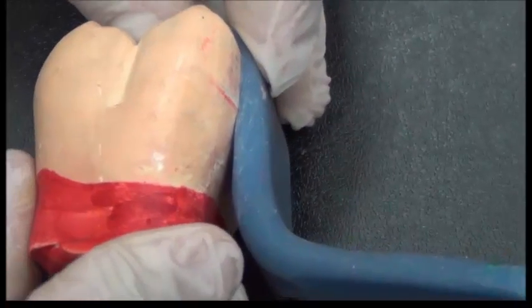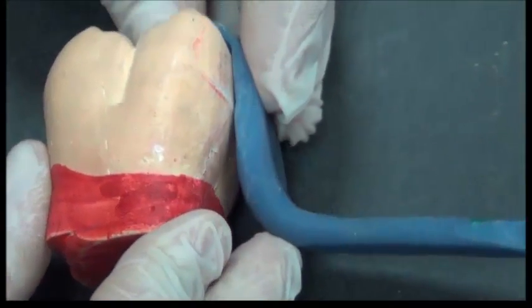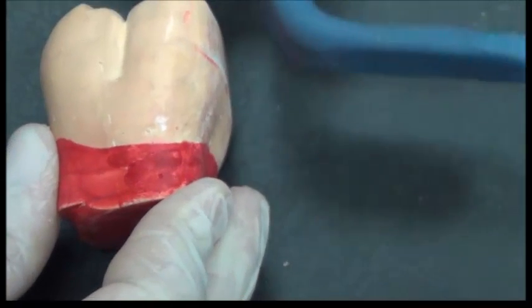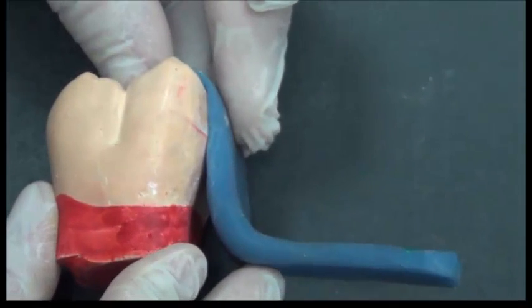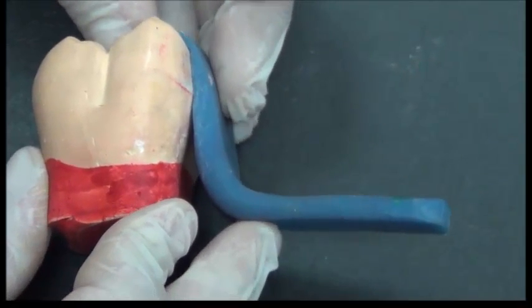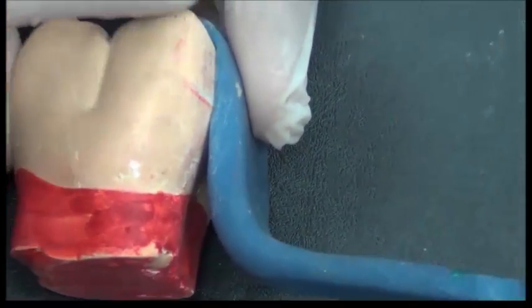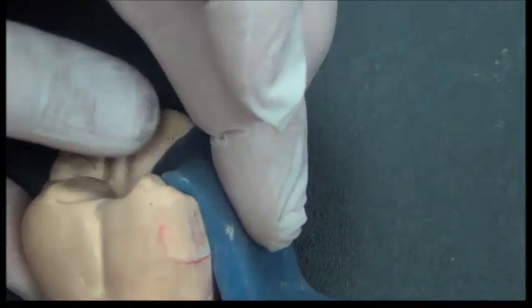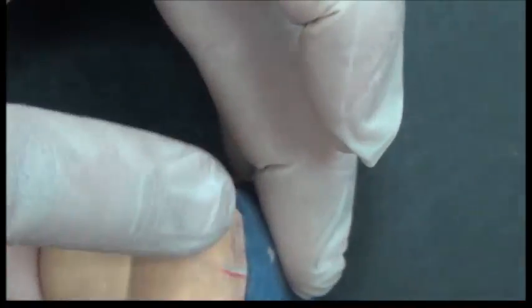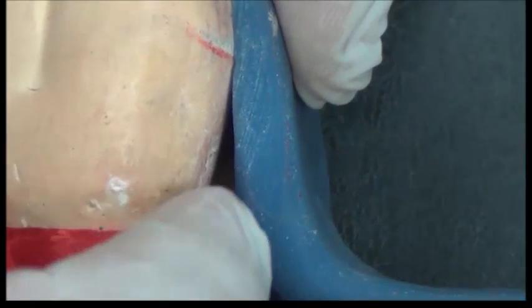Now we're going to talk about the blockout procedure. Remember that we said that metal will be touching the tooth in various areas. It will go in and out. And during function and biting, these metal components will be moving slightly. So we want the metal contacts for stability, to have the stability of the RPD. We have to have close contact on the occlusal surface, close fit and contact on the proximal surface. But we don't want to touch the gingiva around the tooth in this area.